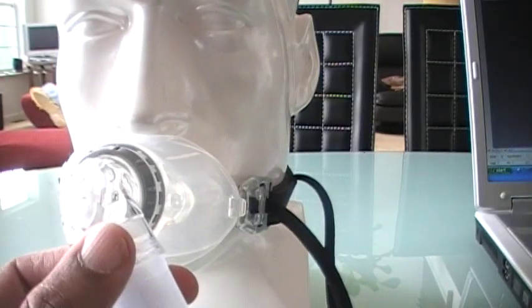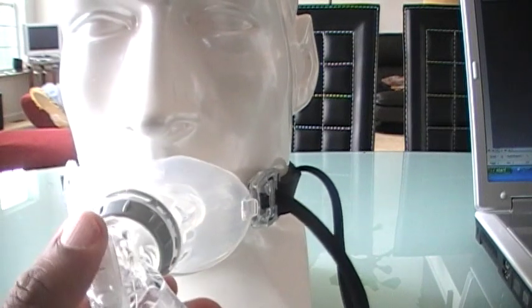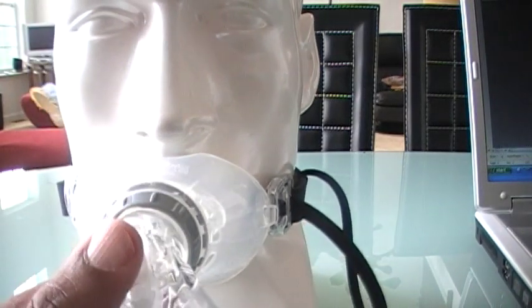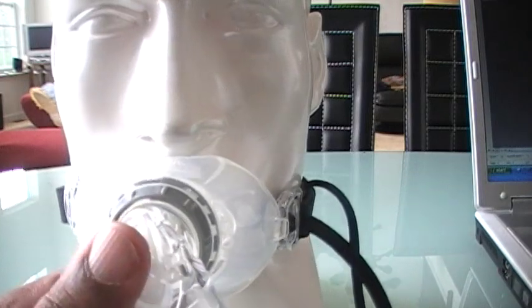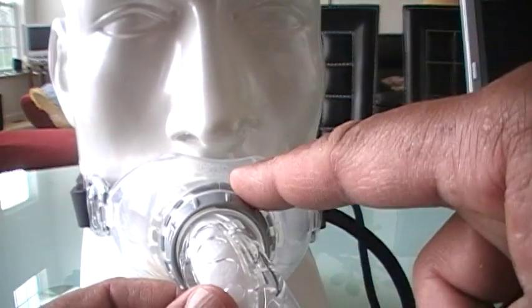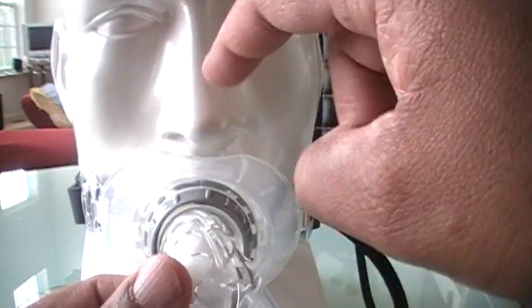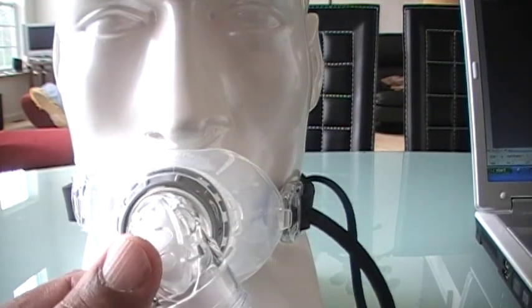It really is a good mask. Not too many people would gravitate to this. It is good if you are a mouth breather, or if you suffer from severe claustrophobia and need a full face mask because you open your mouth. Or if you have nasal pillows or a nasal mask and you're suffering from allergies or a head cold, use this as an emergency backup.